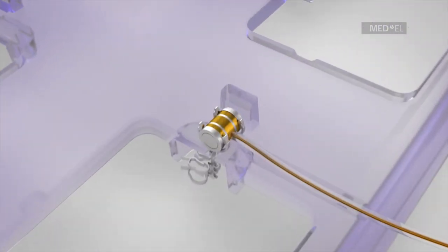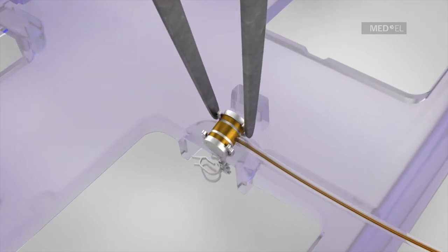The coupler and FMT are gently released from the holding frame.